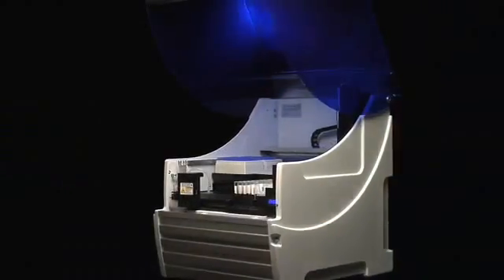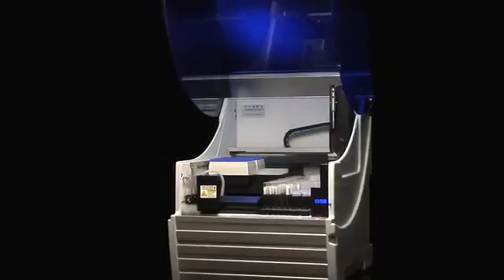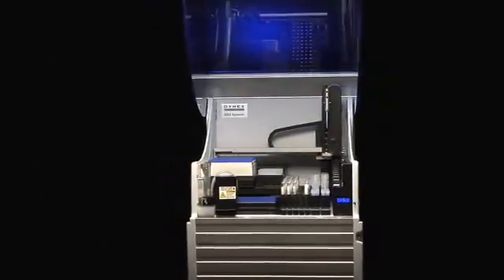The DS2 packs amazing automation power in the smallest footprint available. The system itself takes only two feet of bench space but offers maximum consumable storage.